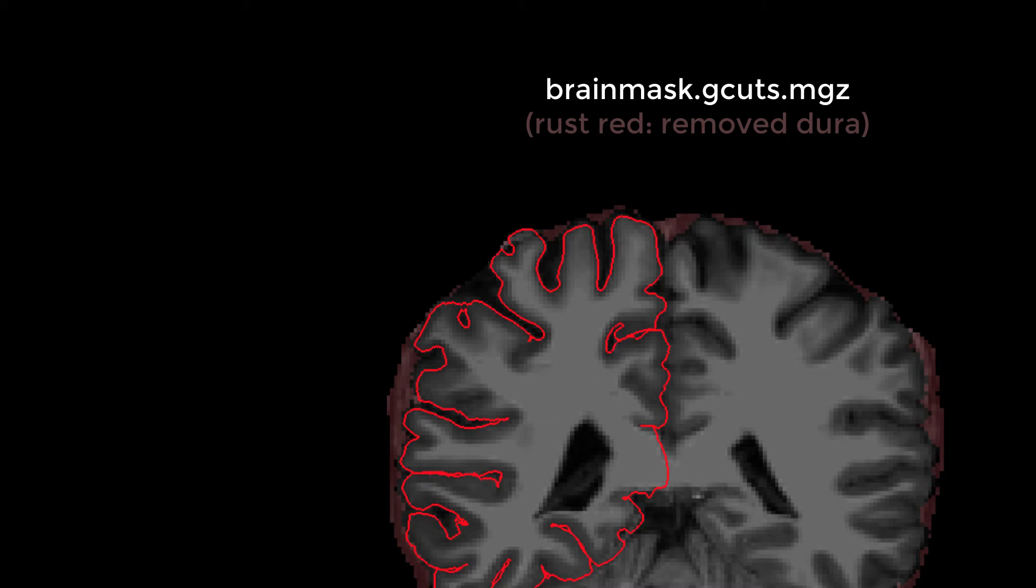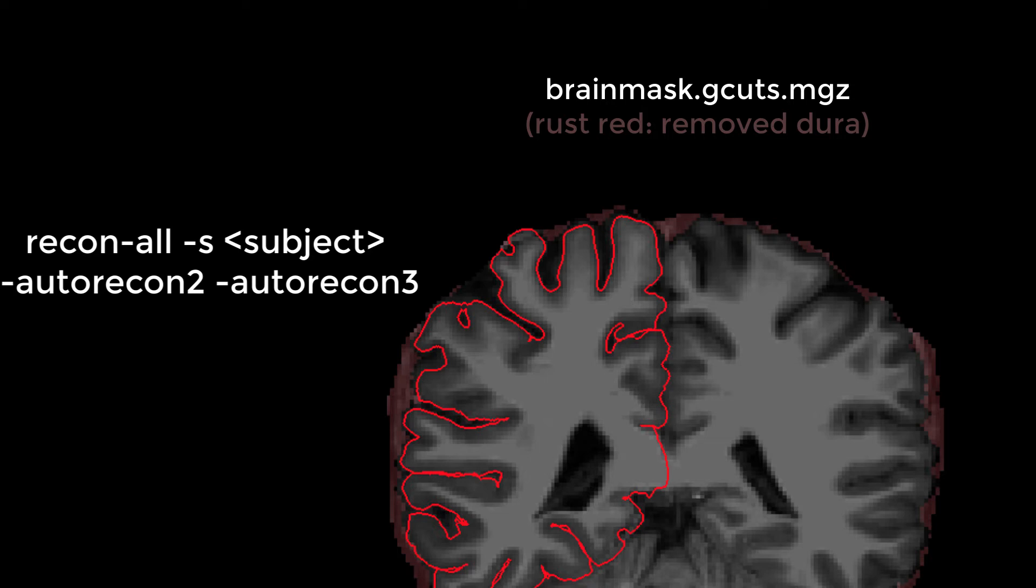If you believe this fixed your problem, then run the following command. This runs all of the steps after skull stripping with the newly stripped brain.